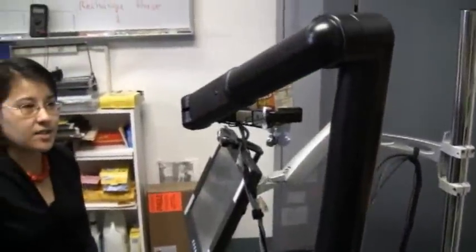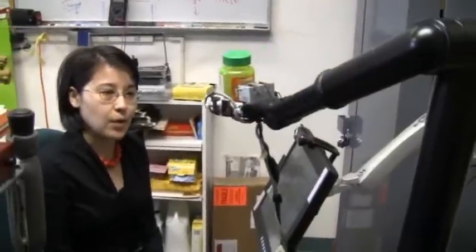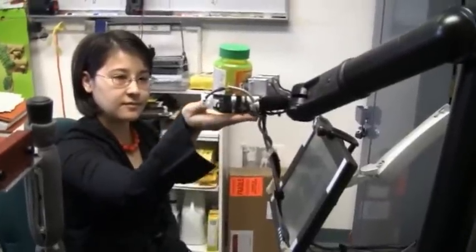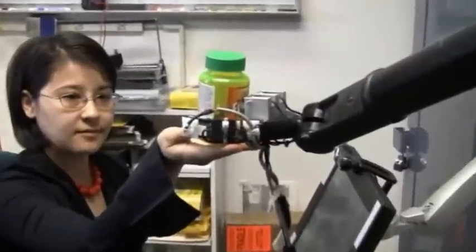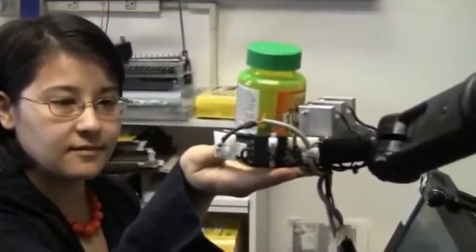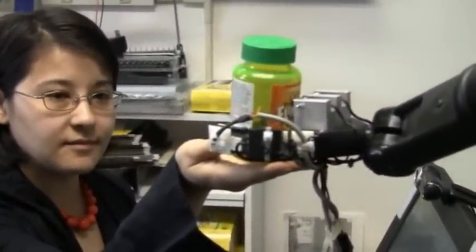And once it's back to the person, it does a little countdown so the person can get ready to take the object from the robot. Here are the vitamins you wanted. Releasing in 5, 4, 3, 2, 1. Opening grip right now.